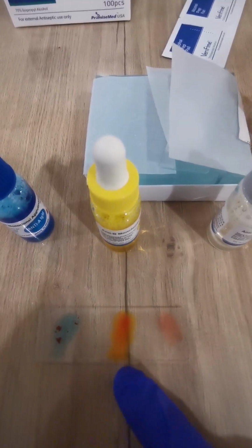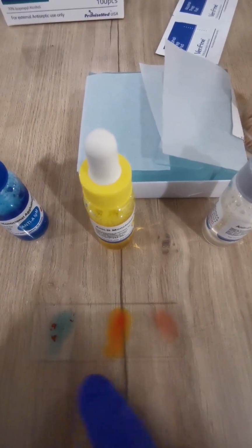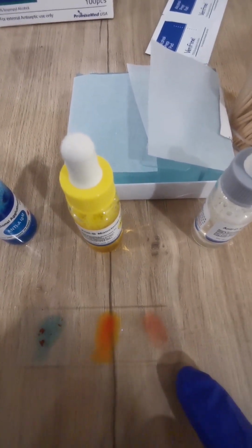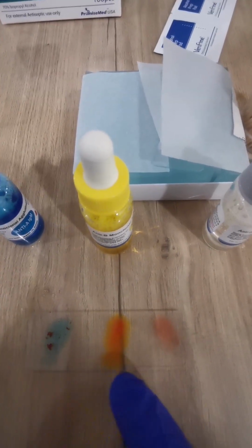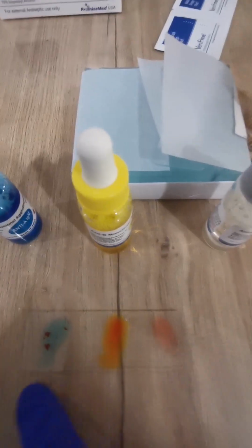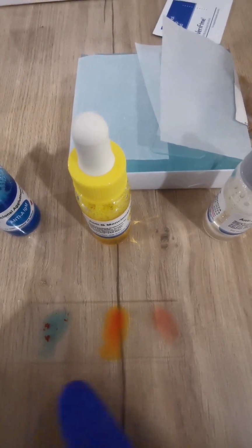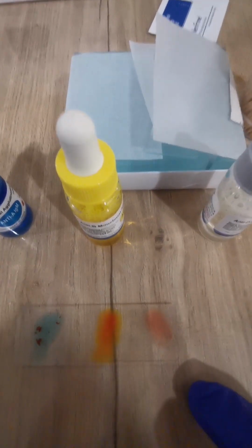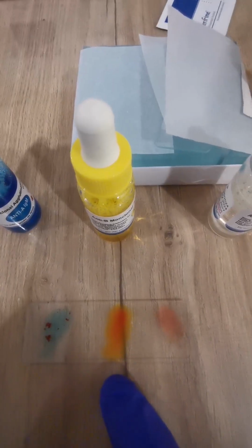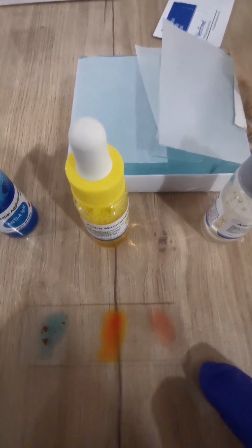What about if the clumping or agglutination happens in both A and B? At that time, we will say it's AB and also negative. What about if clumping happens in all of these drops, in A, B, and in the positive and negative one, which is for the RH? At that time, we will say it's AB positive. What if nothing changed and there is no agglutination or clumping? Then there is no A, no B, and no RH, so we say it's O negative.